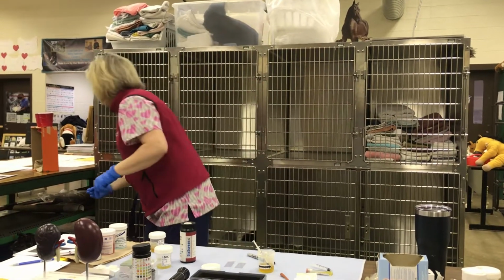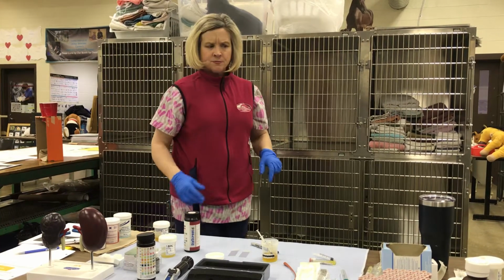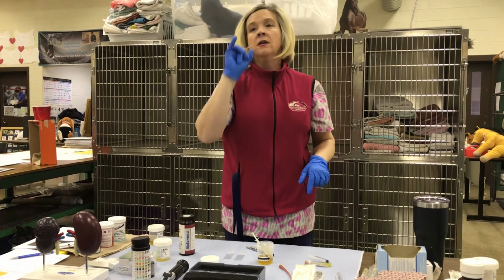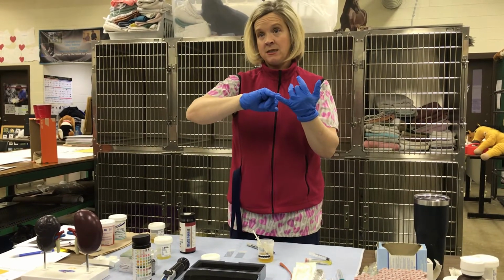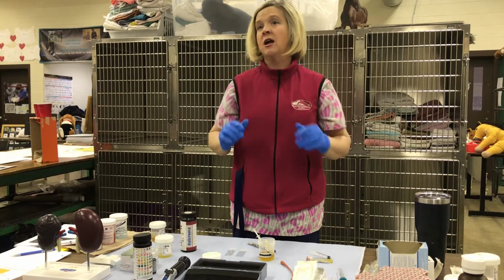What happens if they don't match up? What does that mean? If they do not match up, you go to the color that comes as close as possible. A lot of times if it doesn't match up, it's because your urine sample has blood in it, or the bilirubin is so high that it skews the color.